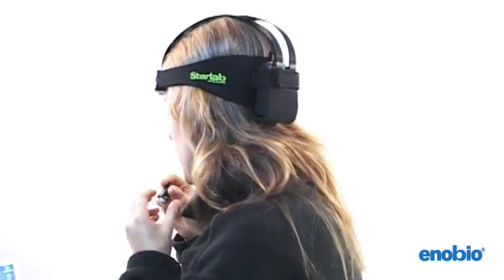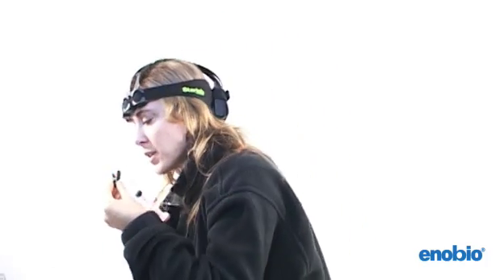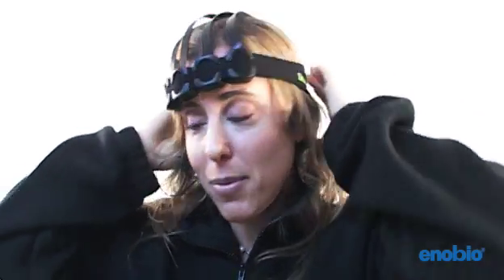This is the reference electrode which does require a little bit of gel for a good connection, which I'm going to clip to my earlobe. And now I'm ready to begin looking at my brain signals.